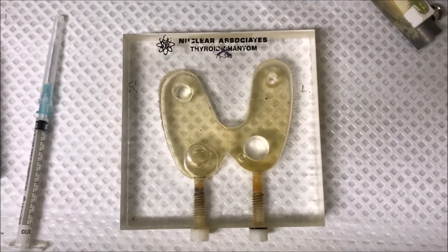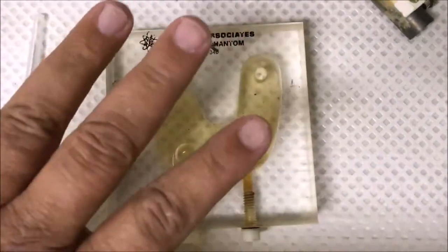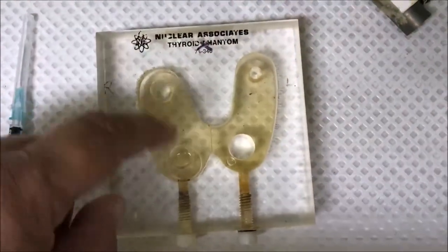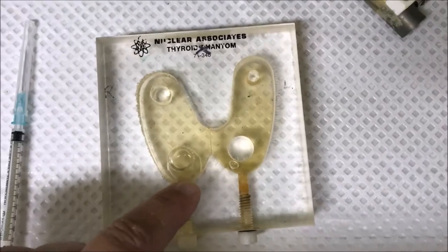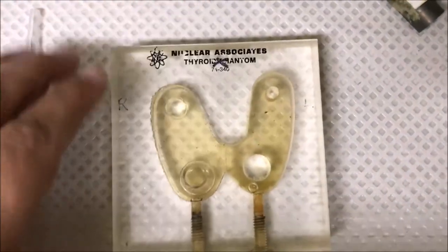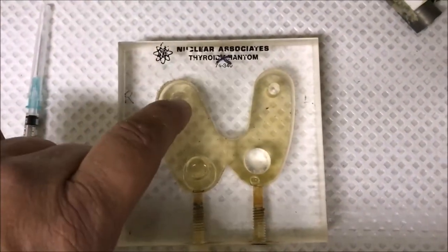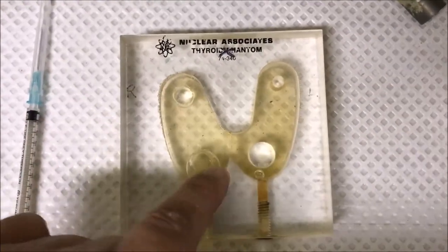So what you can see here — and you can see my hand for scale — it's actually fairly small, about the size of a thyroid, with the butterfly shape of the thyroid. And you can see four nodules.